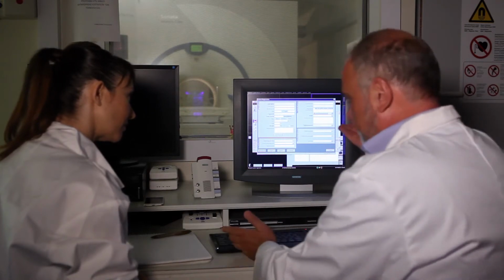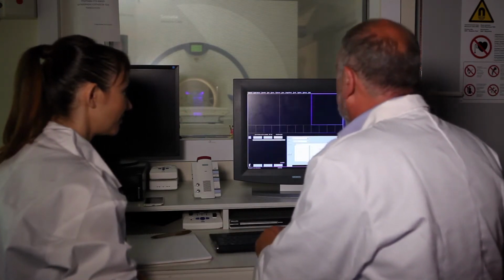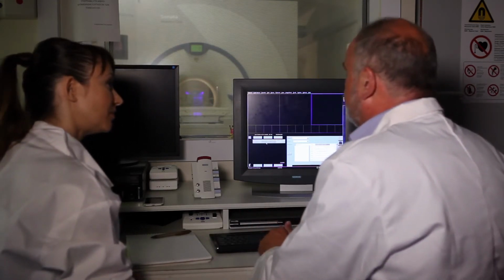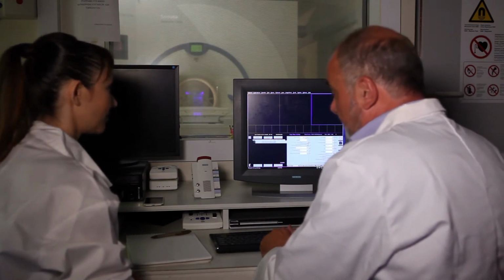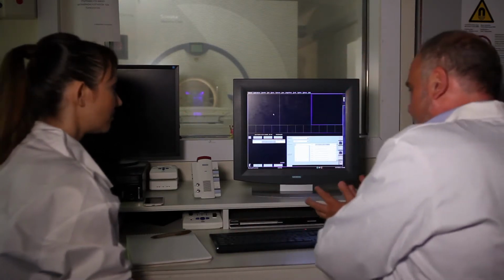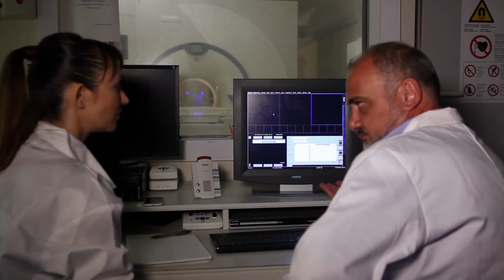Confirm. Actually, the system asks if something is there. Yes, so there is something there. The protocol is already there. It's been loaded because we chose the specific protocol. We start with this. We open the localizers. The localizers are gradient echo sequences, fast enough in order to have the overview or the pre-scan of the object, the quick overview. That's why they're called scouts.